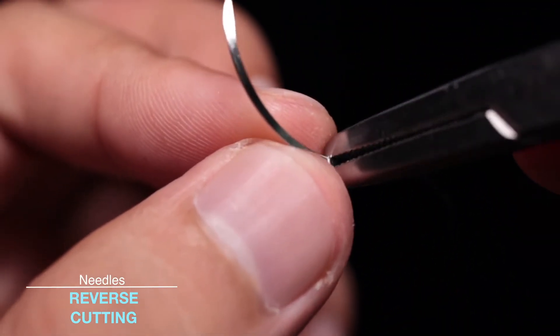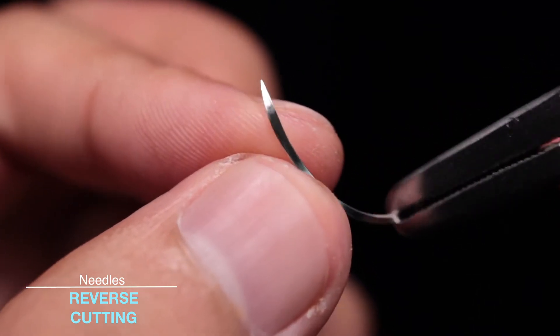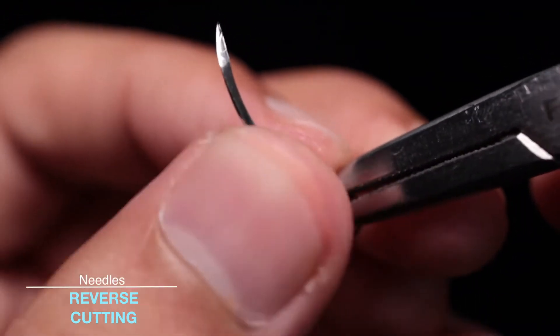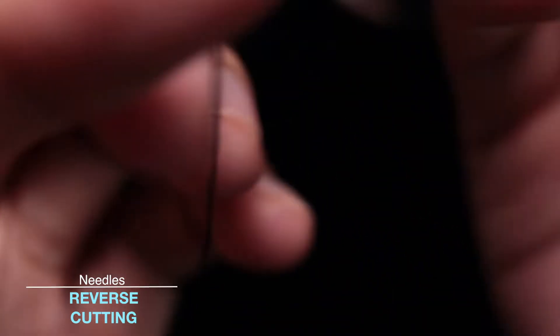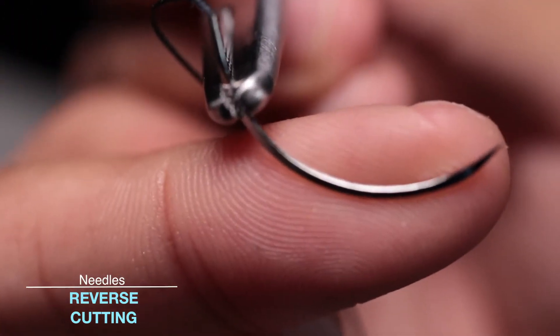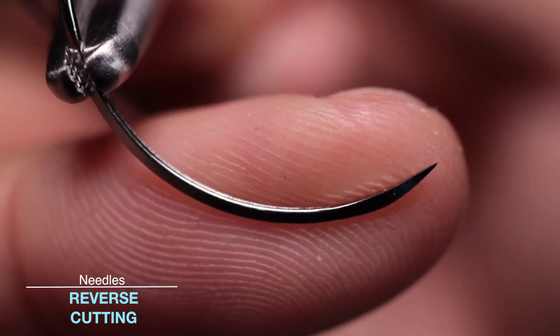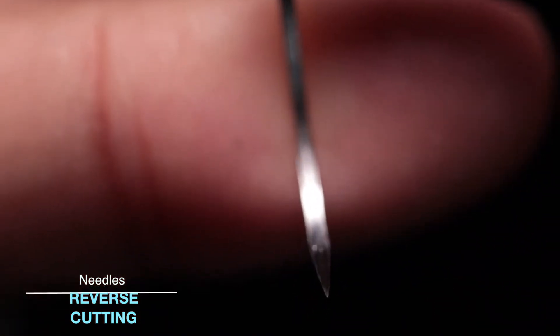One thing to note about cutting needles is that they're better than tapered needles to go through tissue, but the actual edge of the needle itself is not sharp and doesn't cut your skin easily. So you shouldn't be scared of touching the needle, even though you shouldn't actually be handling the needles with your fingers. As you can see, touching it with my finger reveals that it is quite a blunt edge.